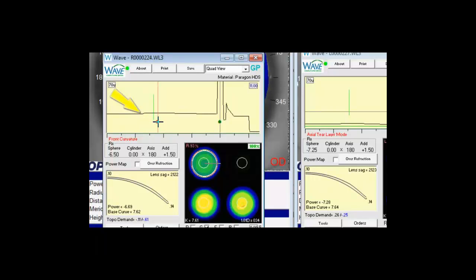So if we set our control point out to 3.6 the add power will begin at about 2.6, about a millimeter smaller. A good general rule to follow, you see this green vertical line that's the pupil indicator line. That's based on the topography.